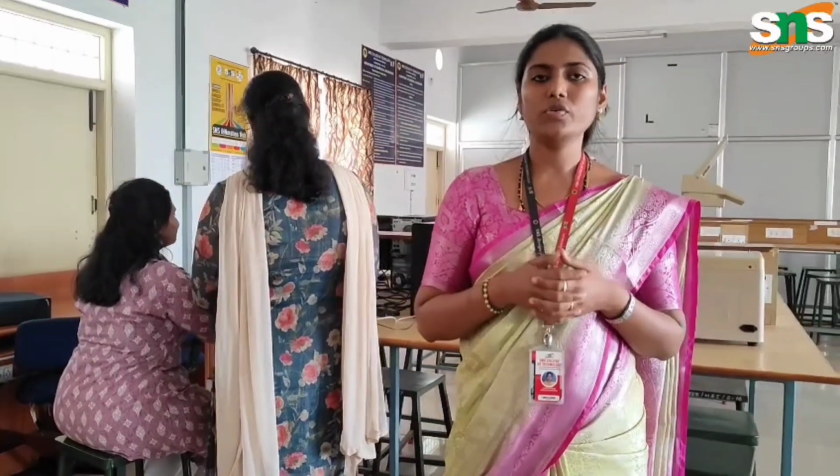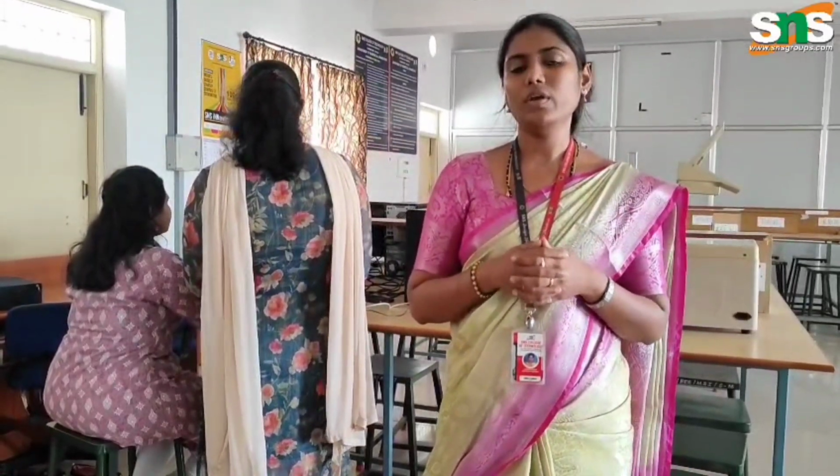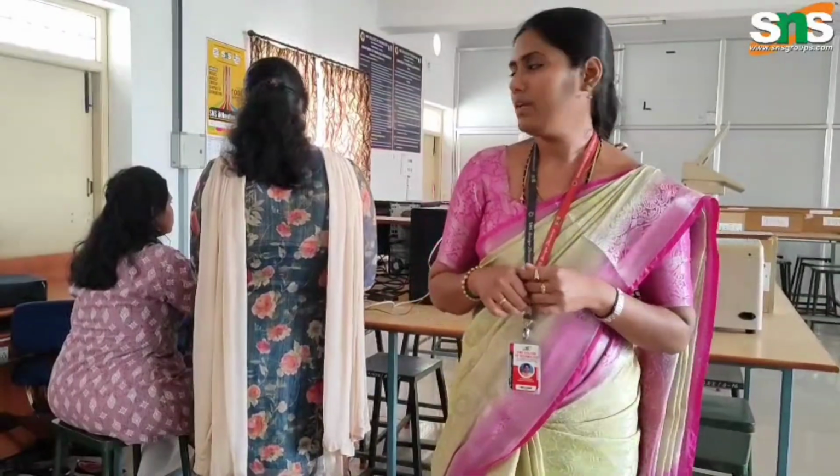Everyone, today we are going to see a DT based activity video on the topic called Spirometer demonstration. This particular video is carried out by students from 3rd year BME. Here we will be seeing a spirometry device and its functionality, and the different functions which are carried out during the test with the help of the spirometer. So let's start this activity video.